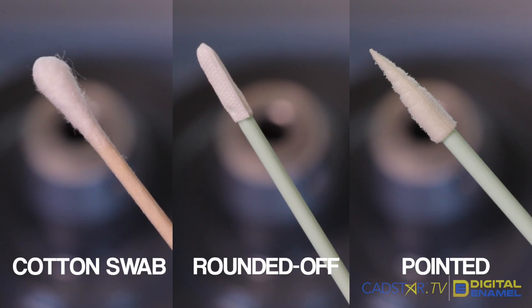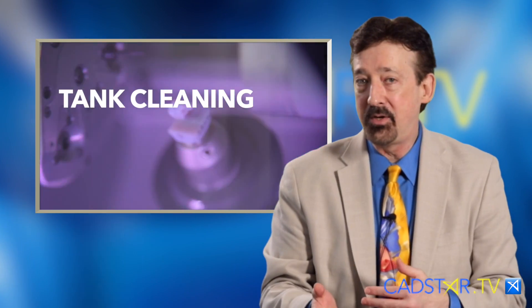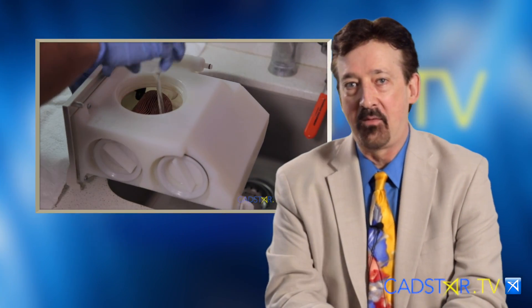It's just like a relationship. You've got to nurture the equipment, particularly in calibrating your cameras, calibrating your milling units, and also maintaining your milling unit. There's ways to optimize that maintenance to make sure it's always working well for you.